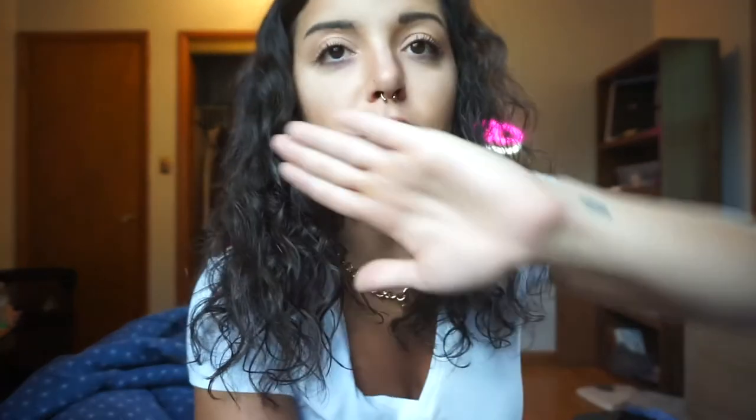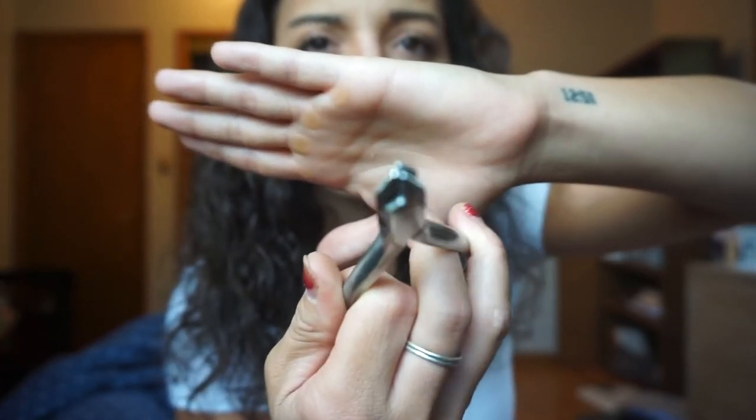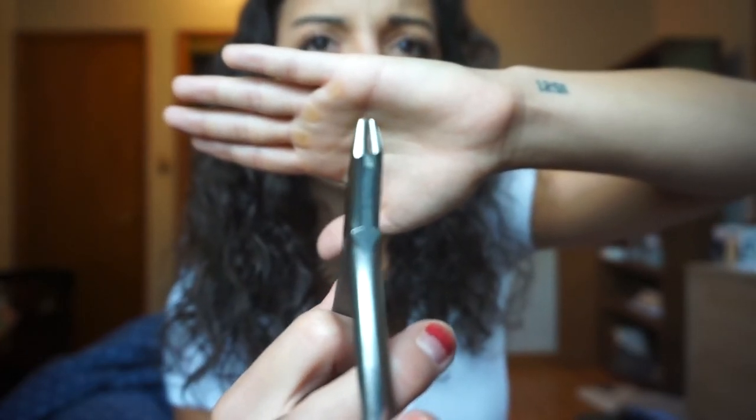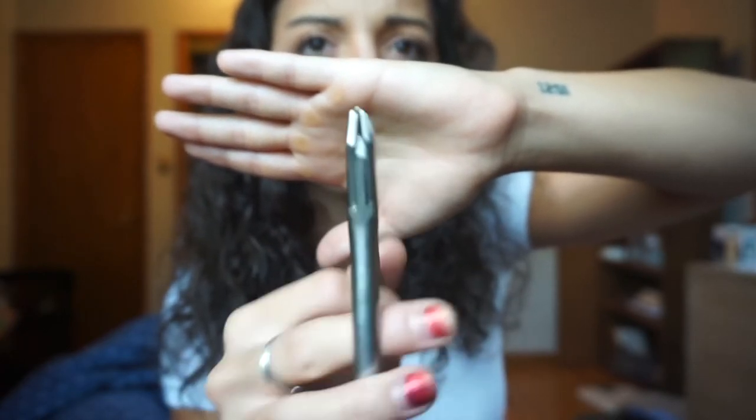Now for the retention setup — there are four instruments. First and foremost is a three prong plier: there are two prongs on one side and one on the other, so three prongs total. This is used to round out lower linguals, which is the bottom retainer that gets glued in. Since your lower teeth are in an arch, you have to round out and bend the flat straight wire to fit.